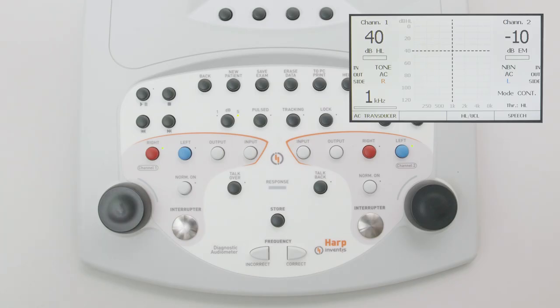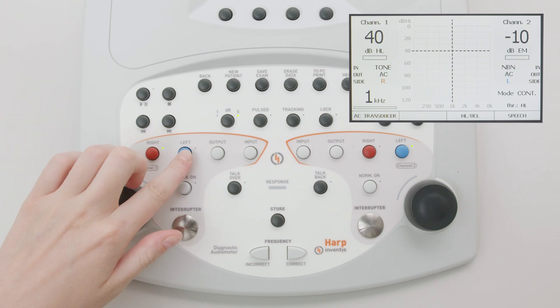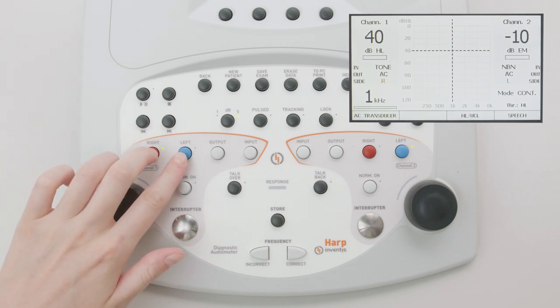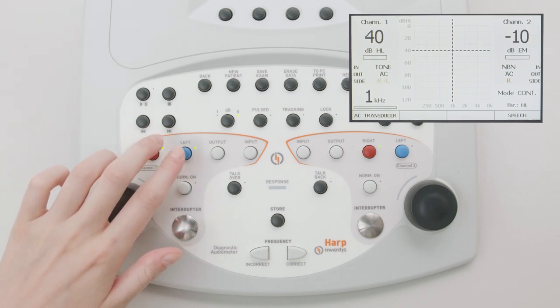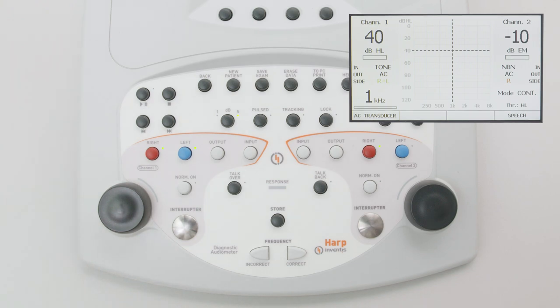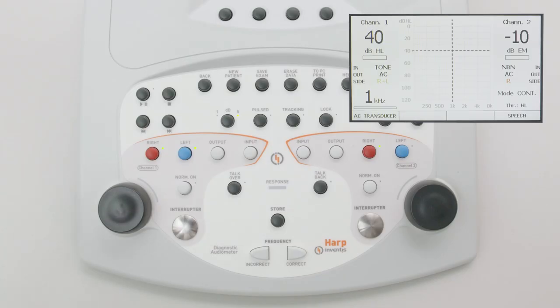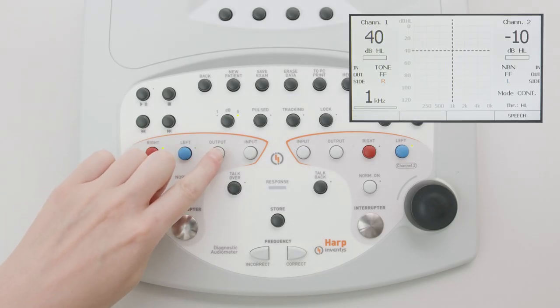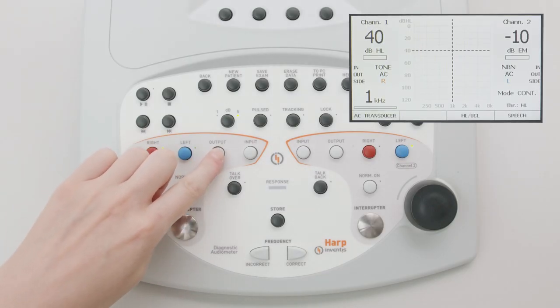The red and blue buttons correspond to the selection of the ear being tested. Press both at the same time to run a bilateral test. Transducer selection is made by pressing the output key, which switches from air conduction to bone conduction and free field.